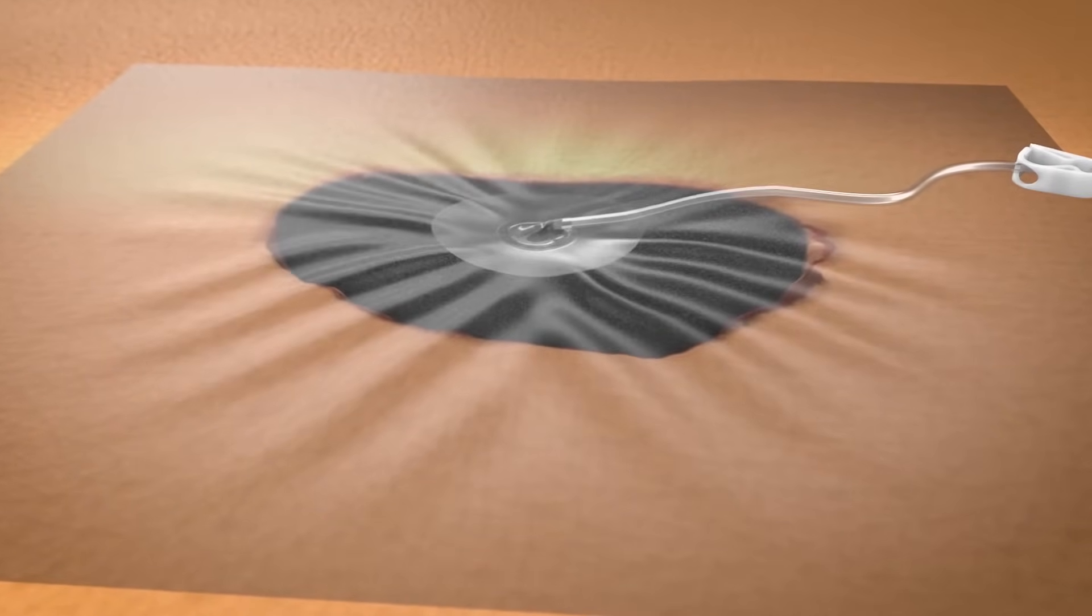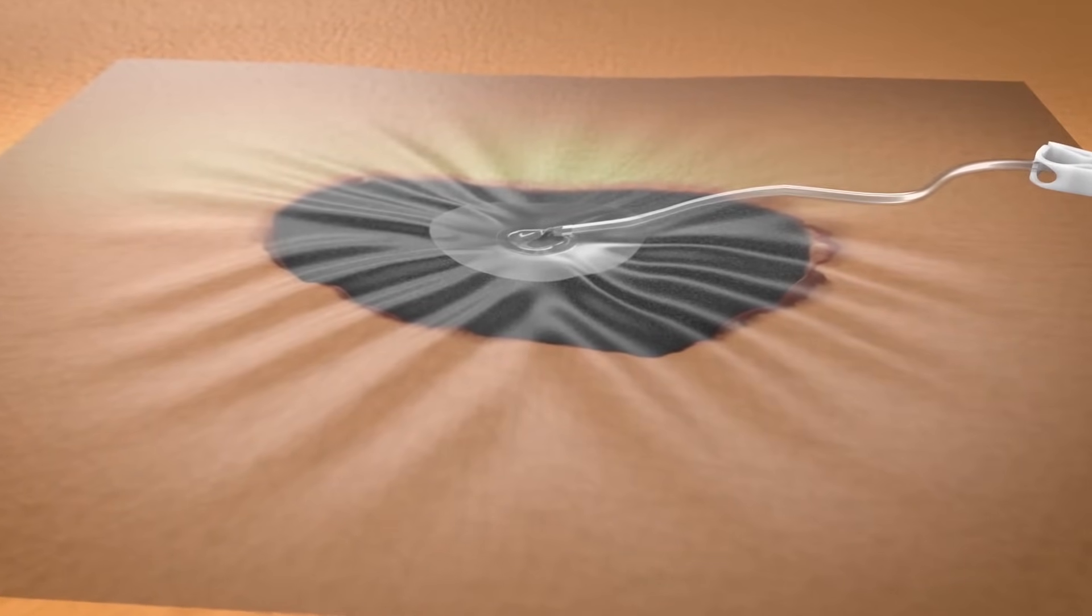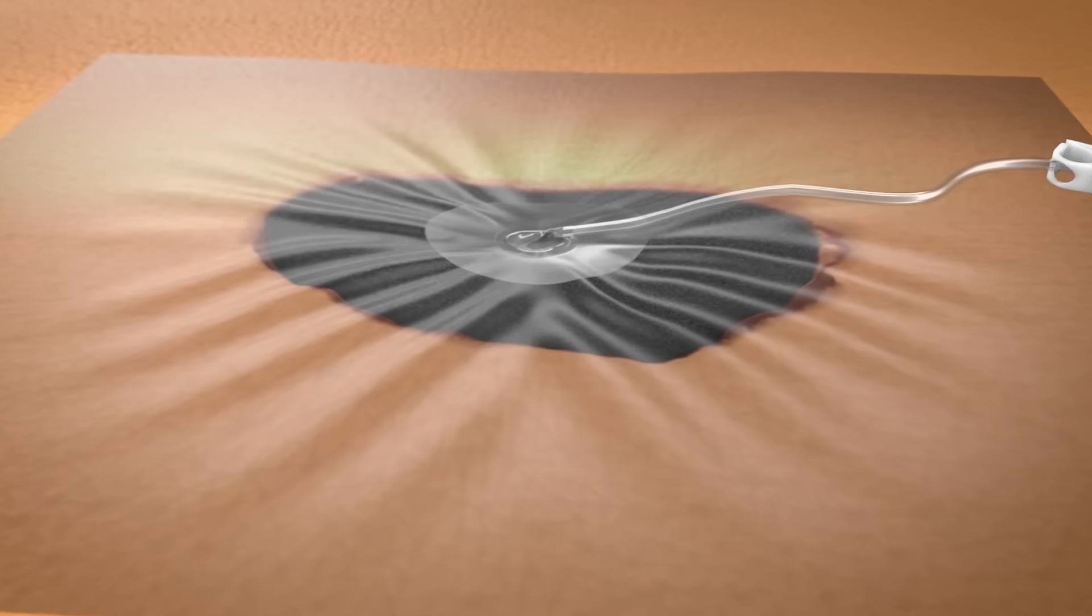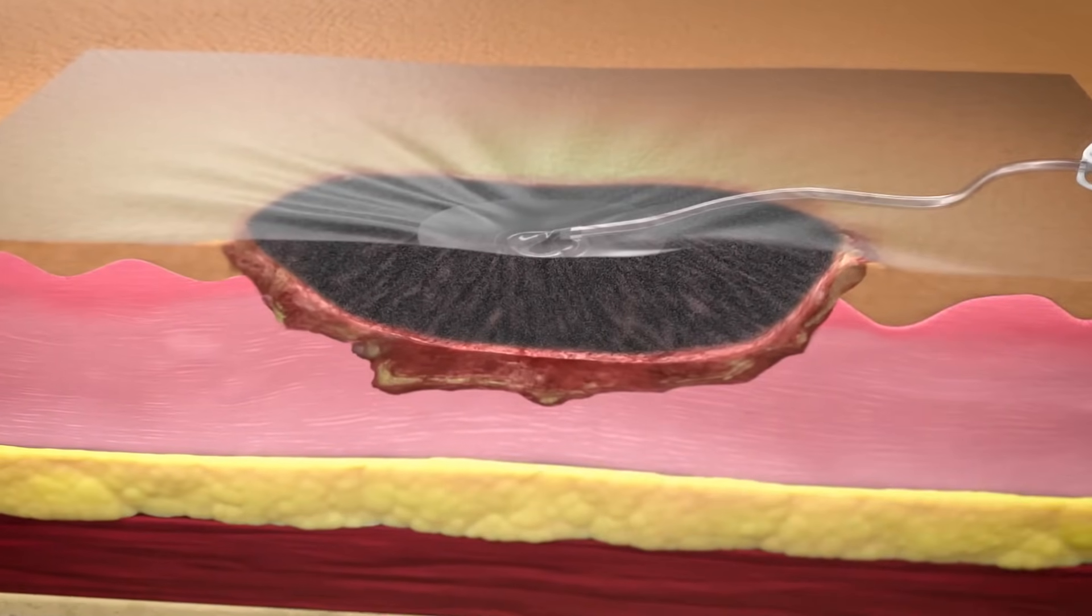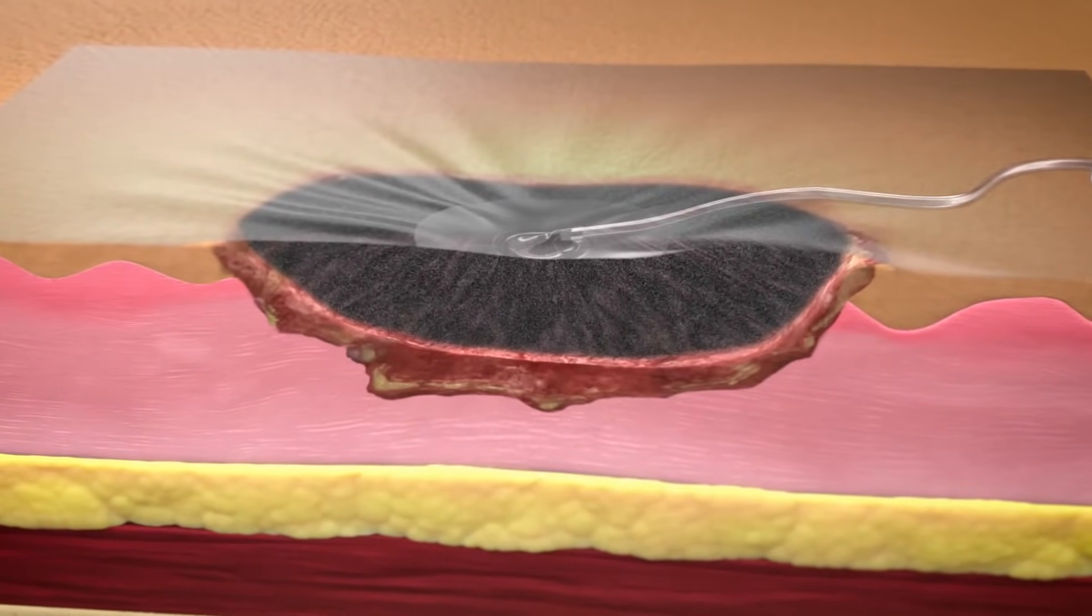Macrostrain is the physical response that can be seen immediately as the wound edges are drawn together, thereby ensuring that there is optimal contact between the wound bed and the 3MVac granufoam dressing.